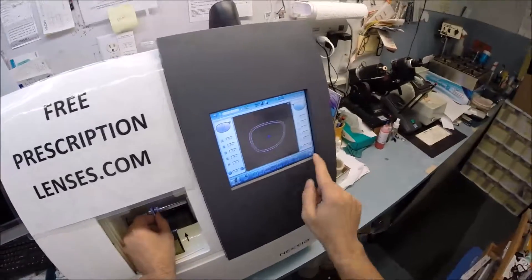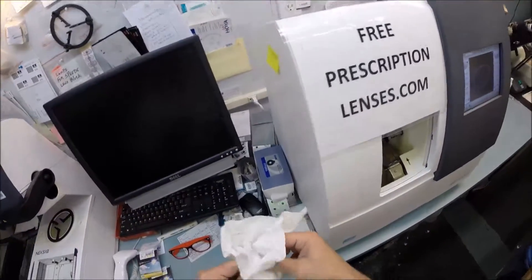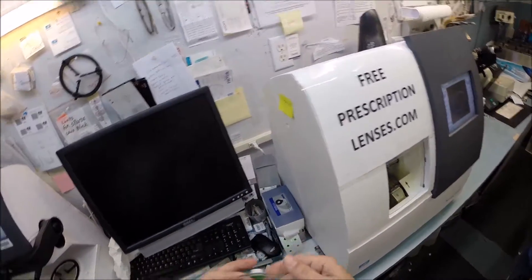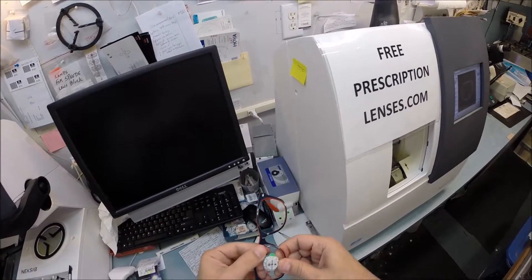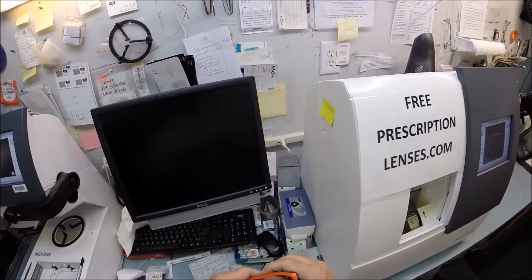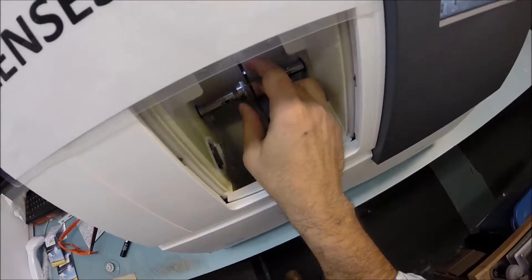I'm going to take the lens out of the chuck, or as I like to call it, the Charles, because I don't know the machine well enough to call it Chuck. Just a little optical humor. I'm going to inspect to make sure there's no optical debris left over, a little swarf as we in the business call it. I'm going to tuck the lens in at the outside corner here and using my thumbs press out the nose. That goes in pretty well. I think that's good.